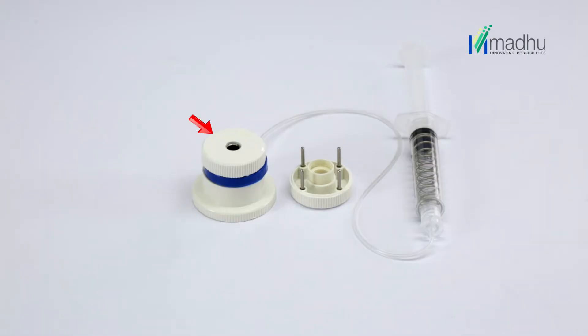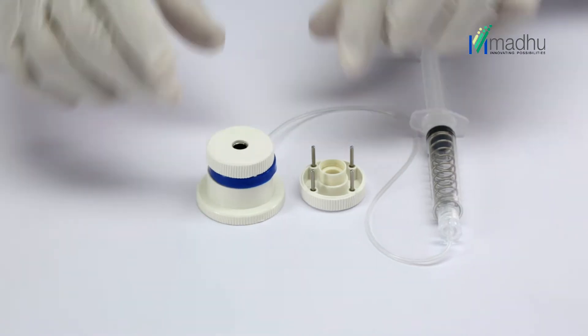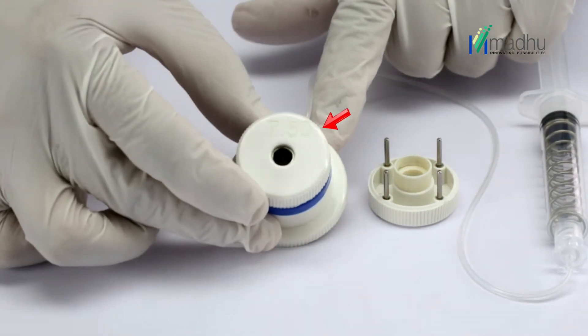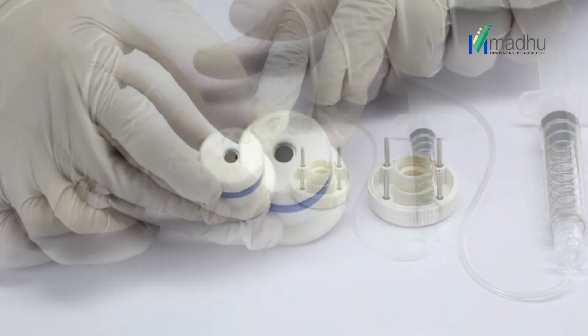A vacuum trephine punch consists of a trephine punch top with stainless steel trephine, cutting block base, blue spacer ring, seating ring, and a spring-loaded syringe. Verify the blade diameter which is engraved on the trephine punch top.